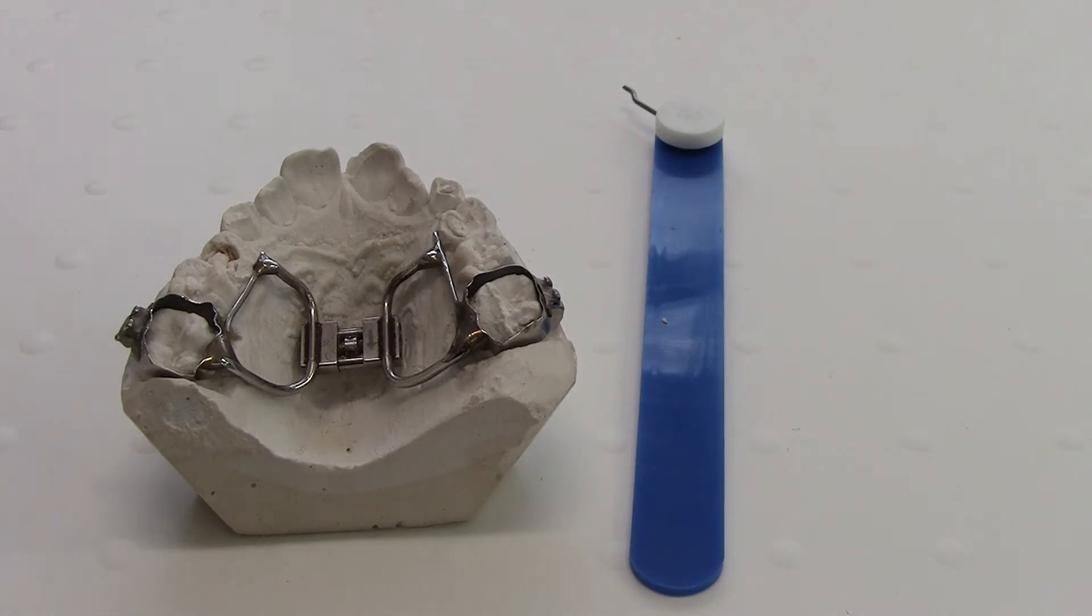When expanding, lie down on your back on a flat surface, making sure that you have plenty of light so you can see clearly. We recommend turning before bed so that you can get used to the expansion overnight.